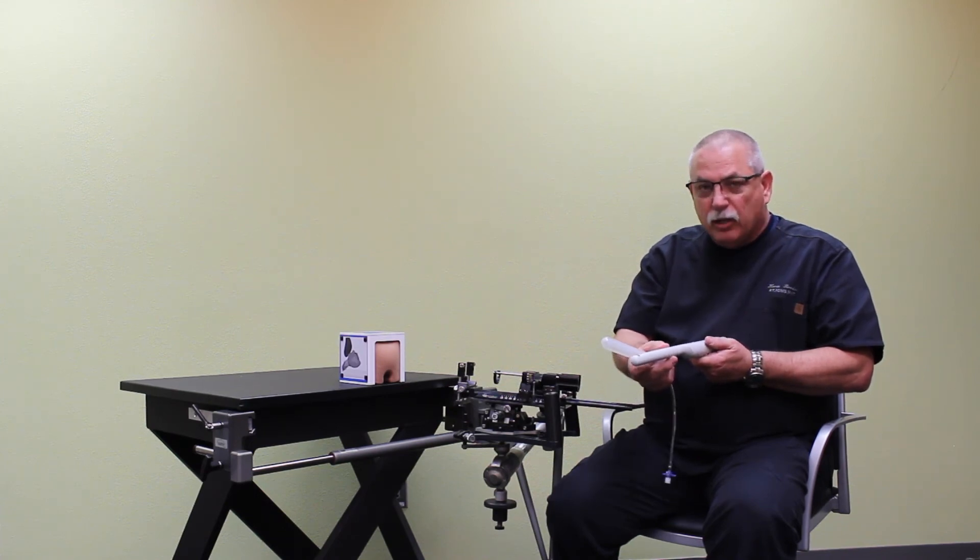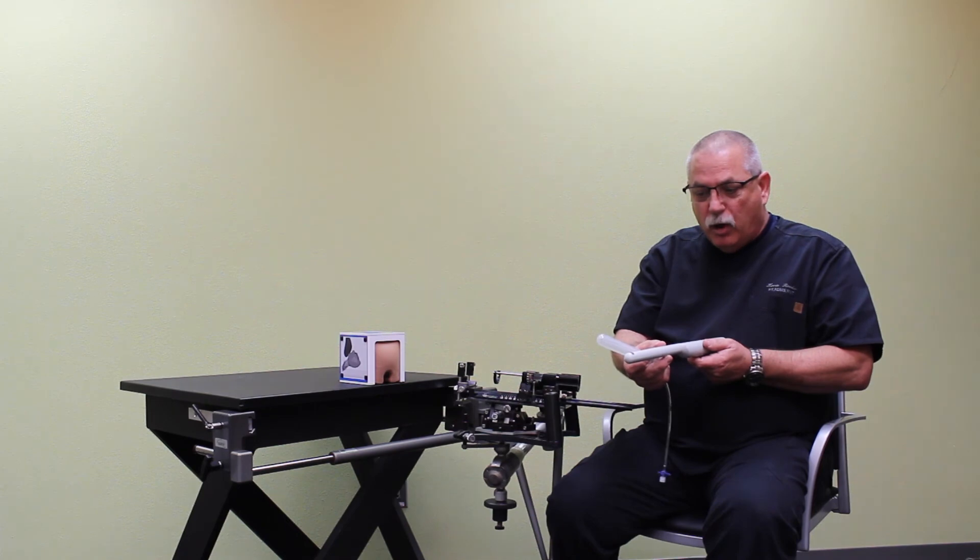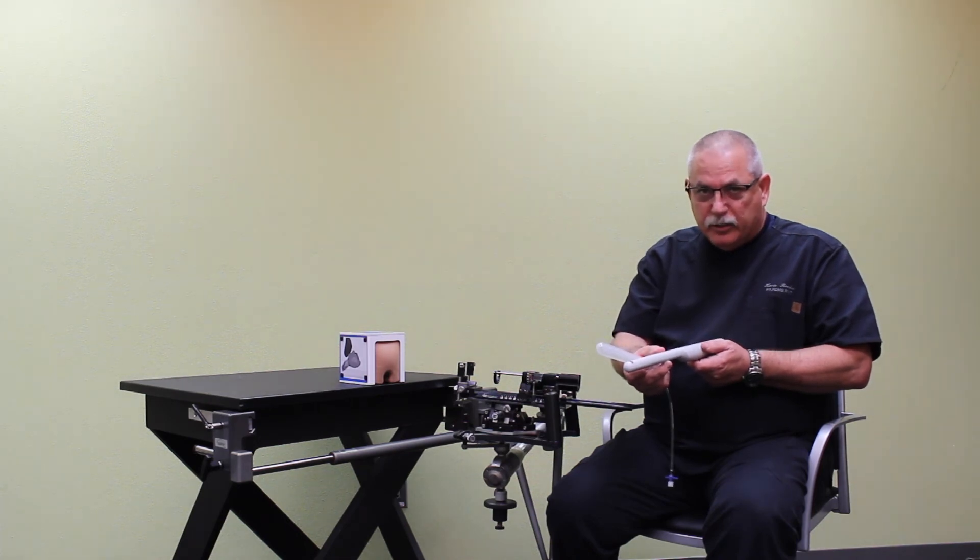And remember to consult your particular manufacturer's IFU on proper high level disinfection of their probe.